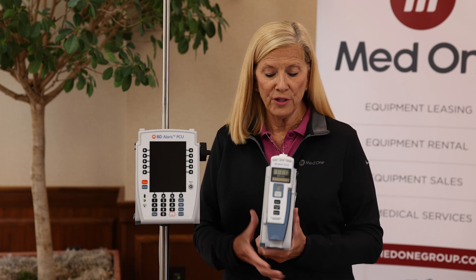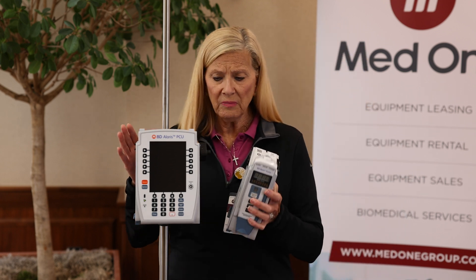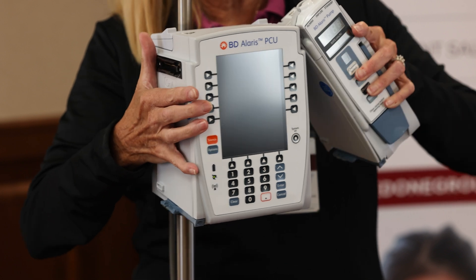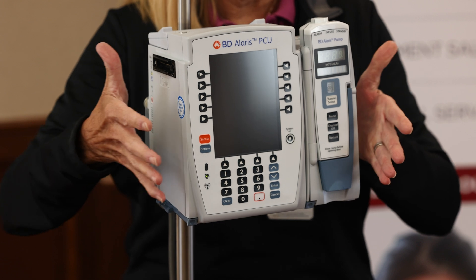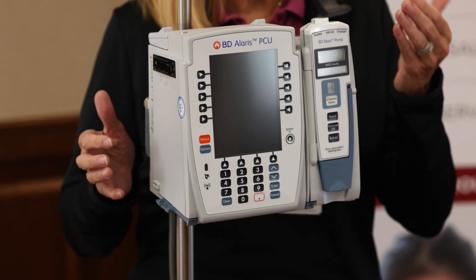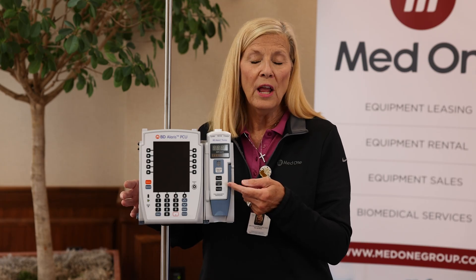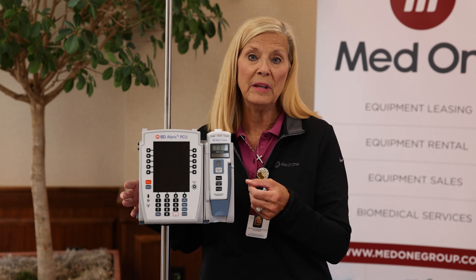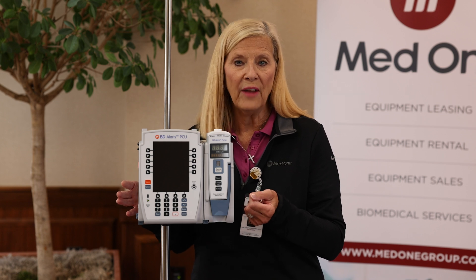You attach the large volume pump module to the PCU by what's called an IUI connector. You cock it at a 45 degree angle and push down at the bottom until you hear that click. That provides connectivity between the brain and the pump module, giving you access to the Guardrails Drug Library and its safety software when programming your infusions, which helps reduce medication errors at the bedside.